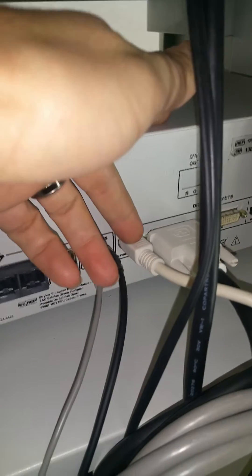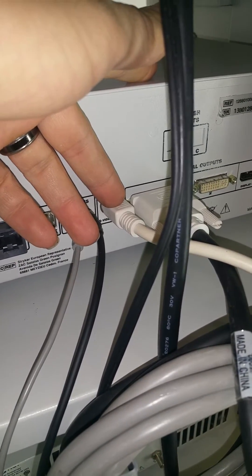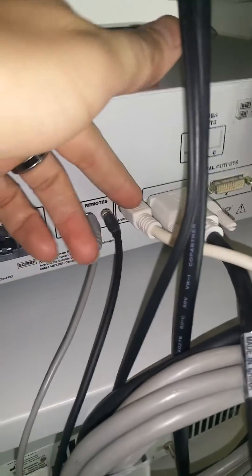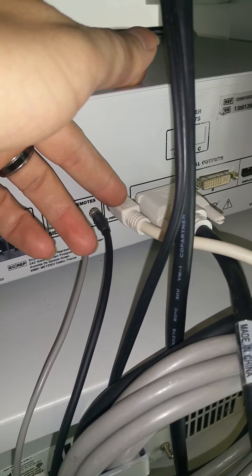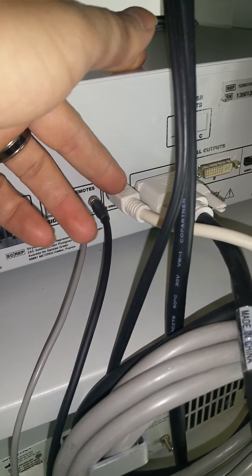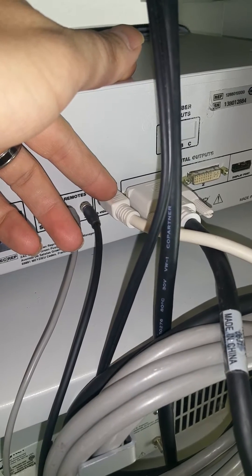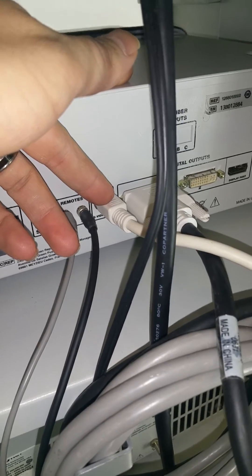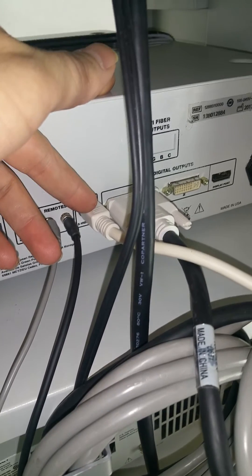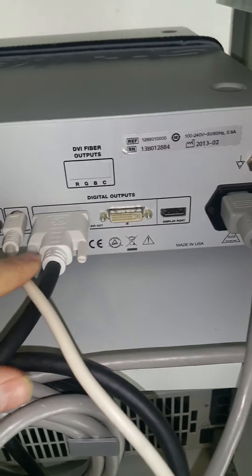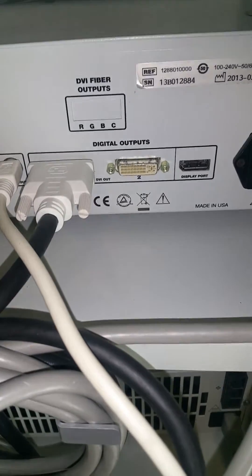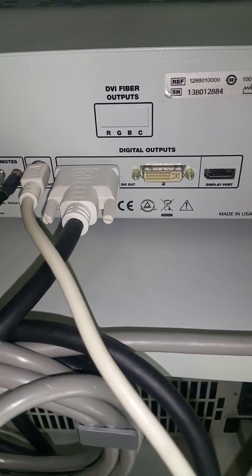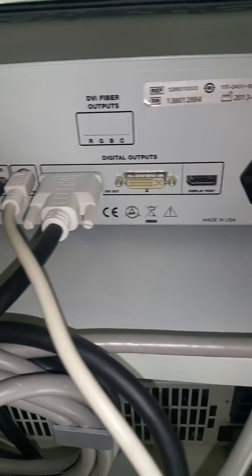Here is the S video cable. It is just a video out. That's kind of the standard definition as far as video quality goes. I use it more as a backup, so that in case your digital output stops functioning for whatever reason, you can simply switch over to the S video and be able to still see what you're doing during a procedure.